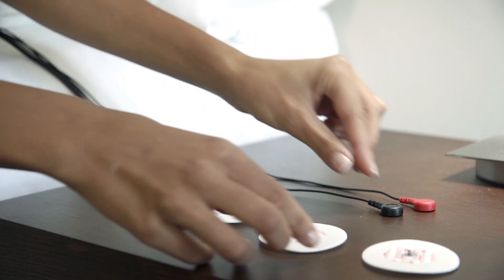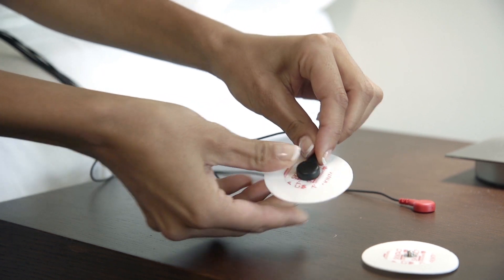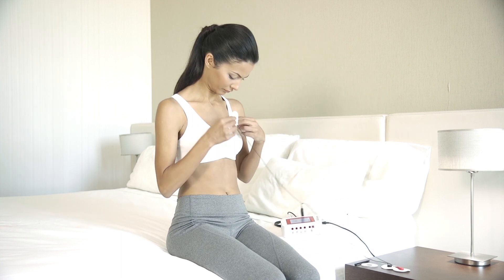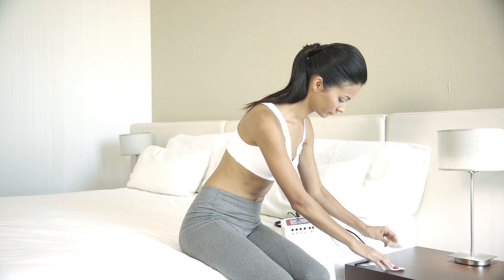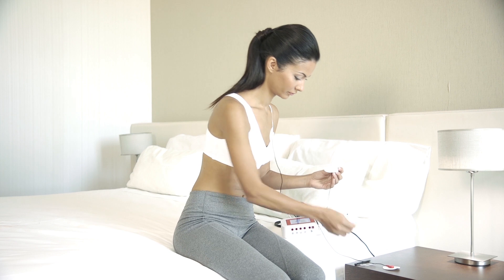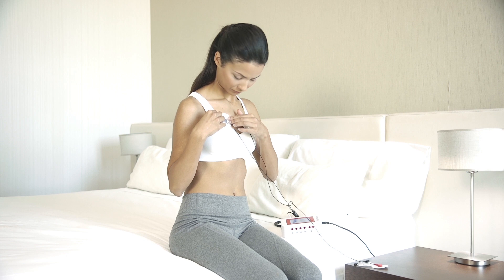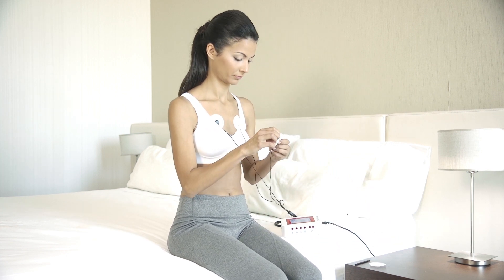Now, connect the three electrodes and place them on your chest. The white electrode goes on the left pectoral upper part. The black electrode goes on the right pectoral upper part. And the red electrode on the abdomen below the navel.